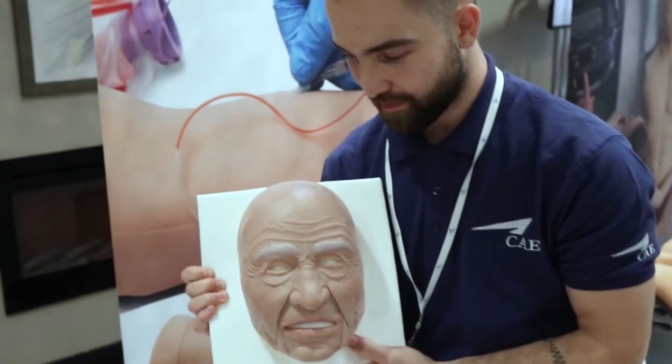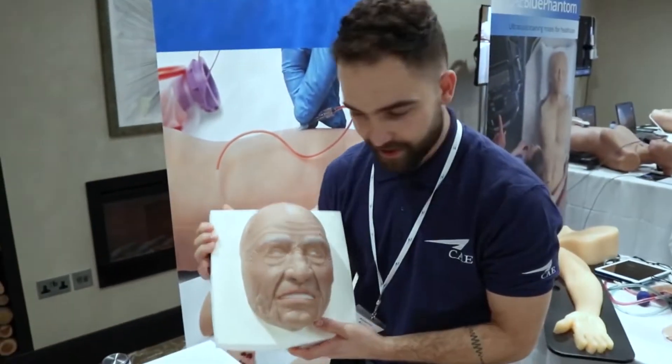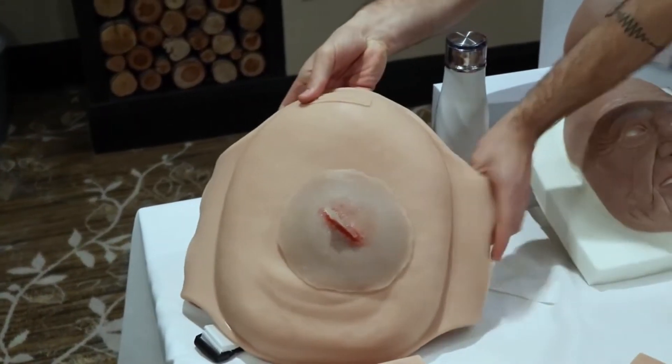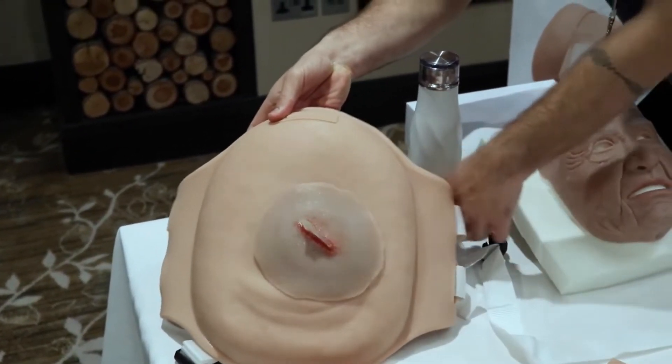Finally, we've got a beautiful mask here. This is Jerry, our geriatric mask that can fit perfectly on Iris and Juno. And finally, we have this postpartum belly that you can wear on a mannequin or a standardized patient.